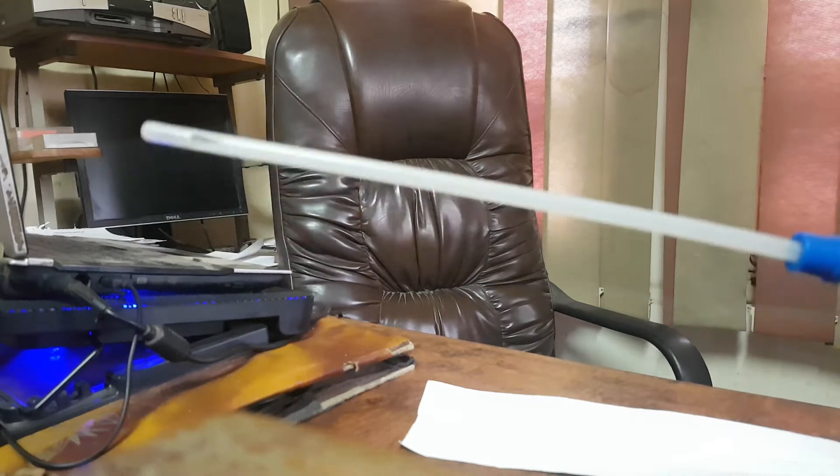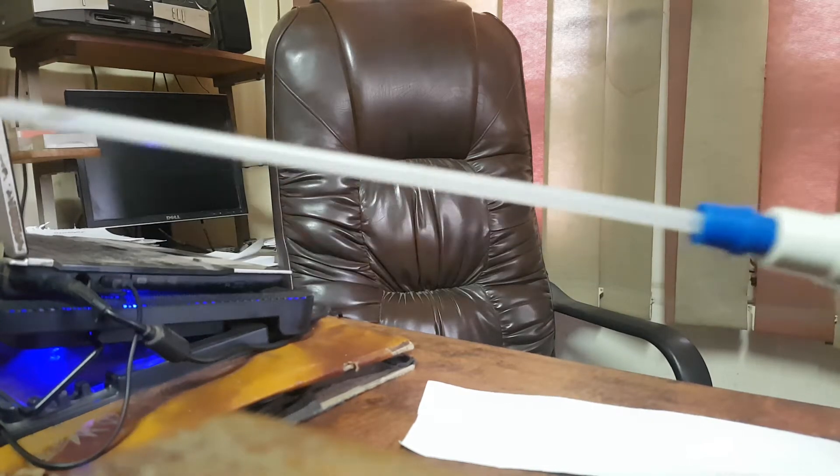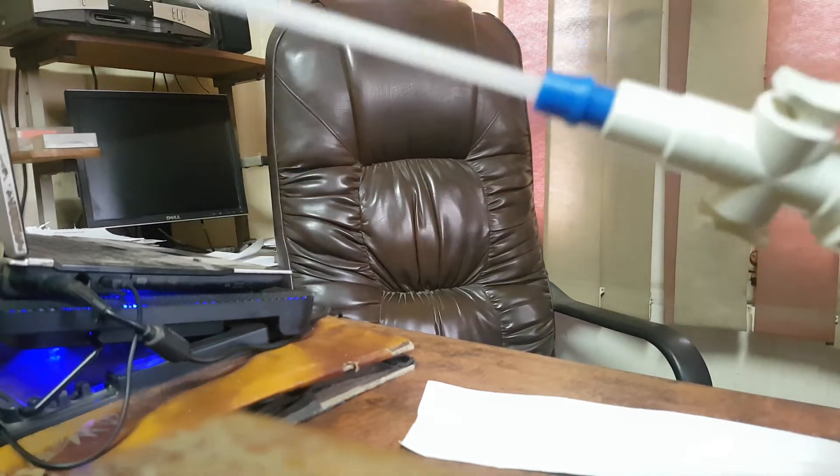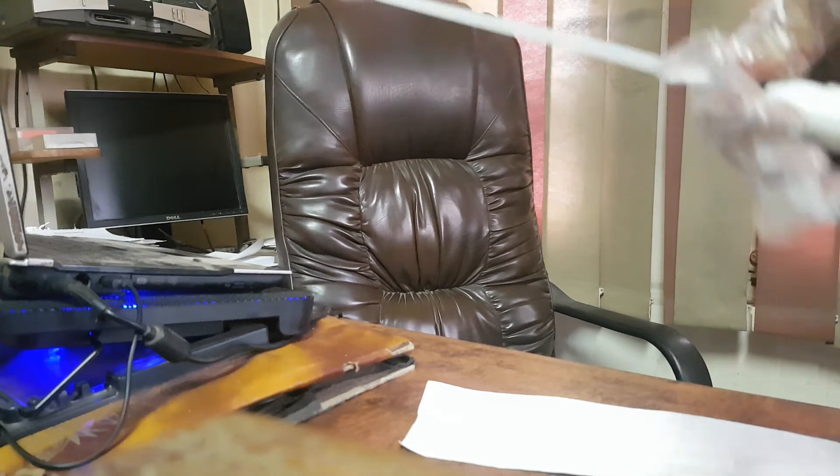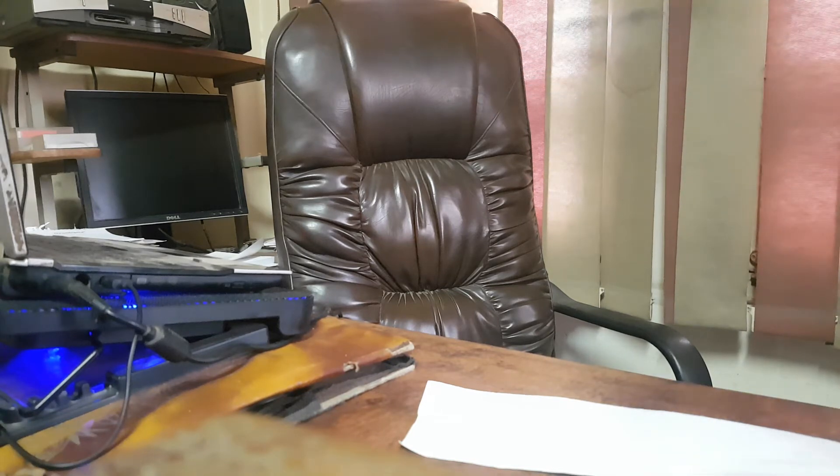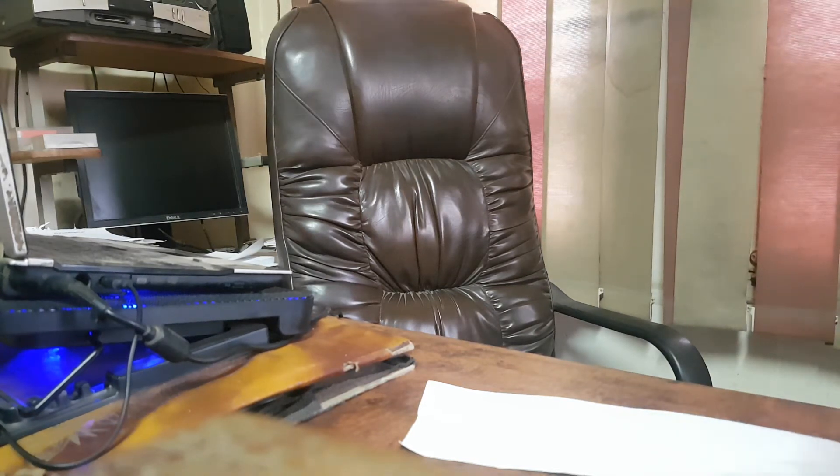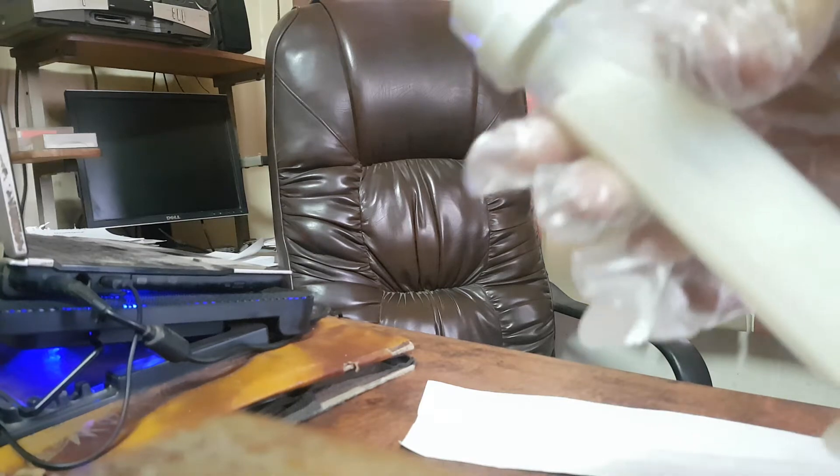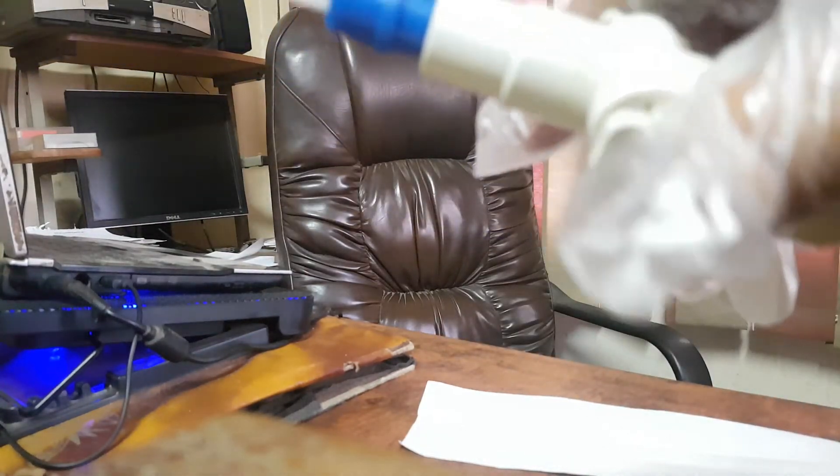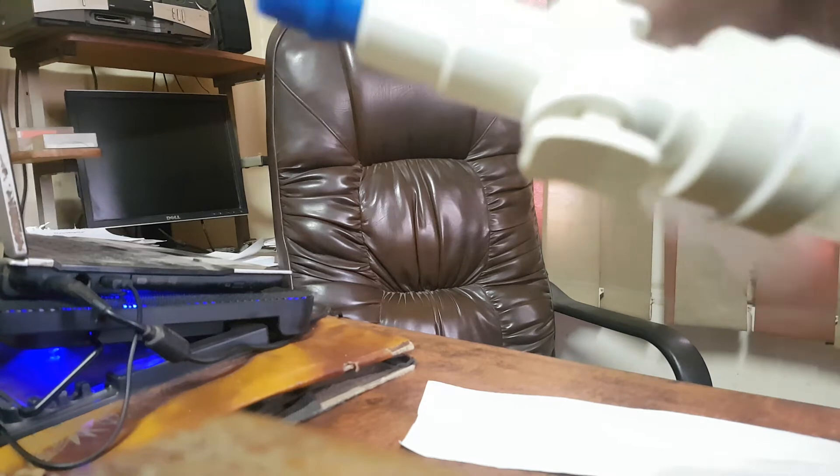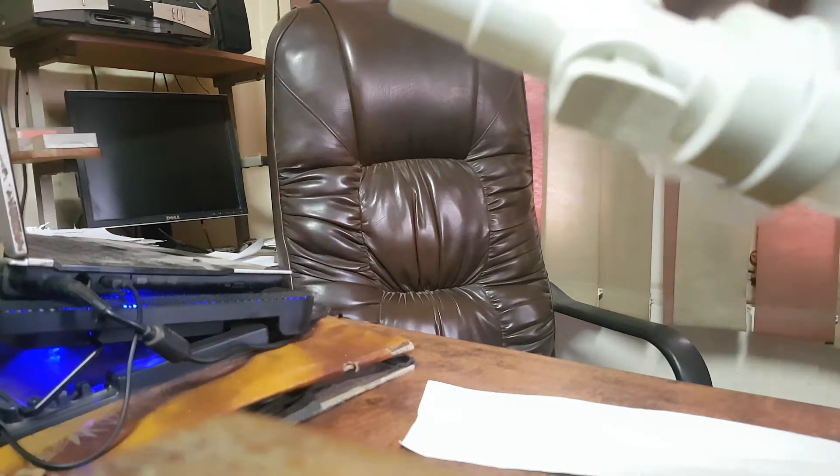What are the parts of MVA? As you see here, this is the cylinder. This is the cylinder. And this is the valve. We have two valves here.